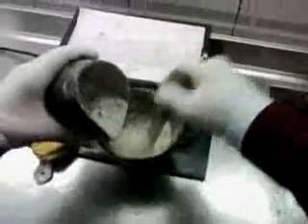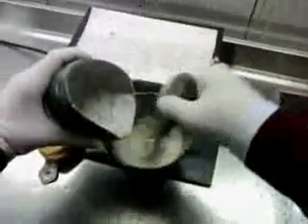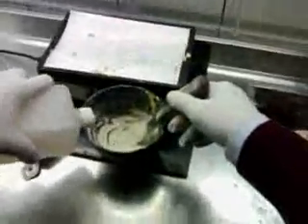Now we're mixing the white gypsum. We're going to get ready to build up a base for this. There are different reasons why I use two different kinds of powder. One reason — probably the most important — is that this white gypsum is cheaper than my yellow gypsum. So we have some savings, because when you're doing hundreds of these models per year, at the end it adds up into dollars.